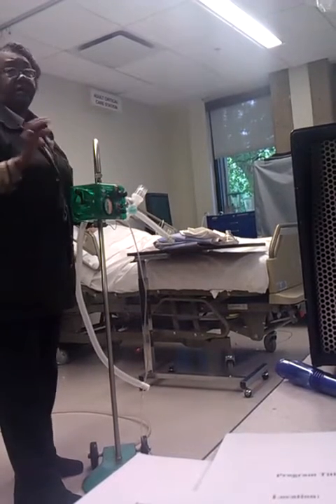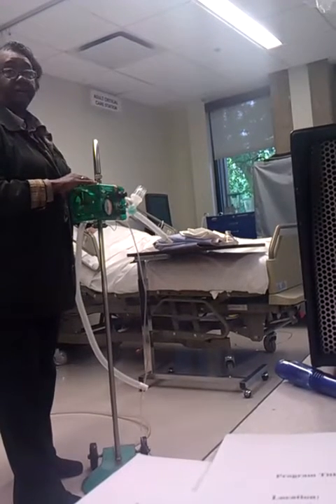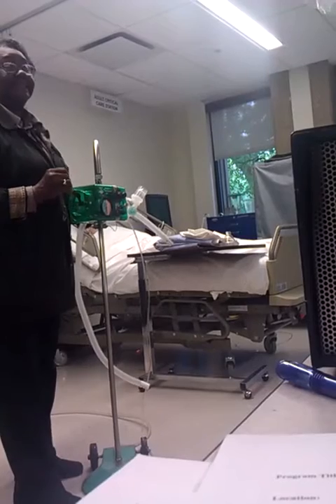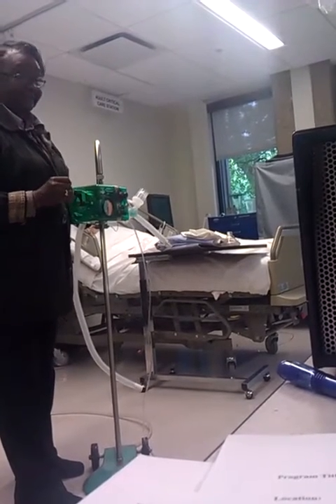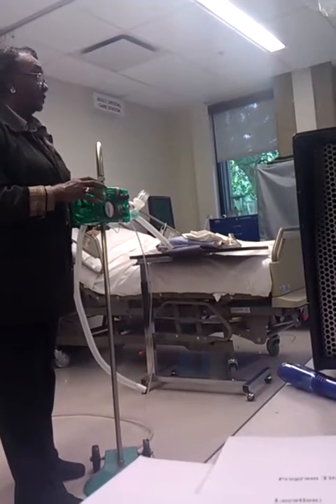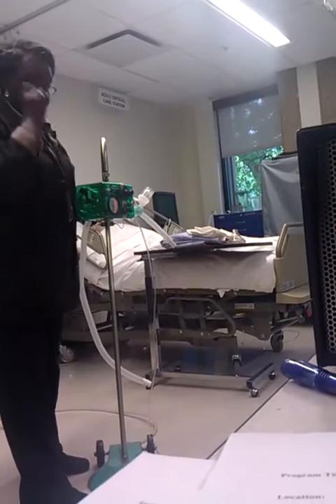But as I always said, your FiO2 is guess your best. You have no way of knowing what FiO2 you're actually giving your patient. Really. That's why most of the time, if they use this, if the patient is not on oxygen, they will get it on room air, if at all possible.